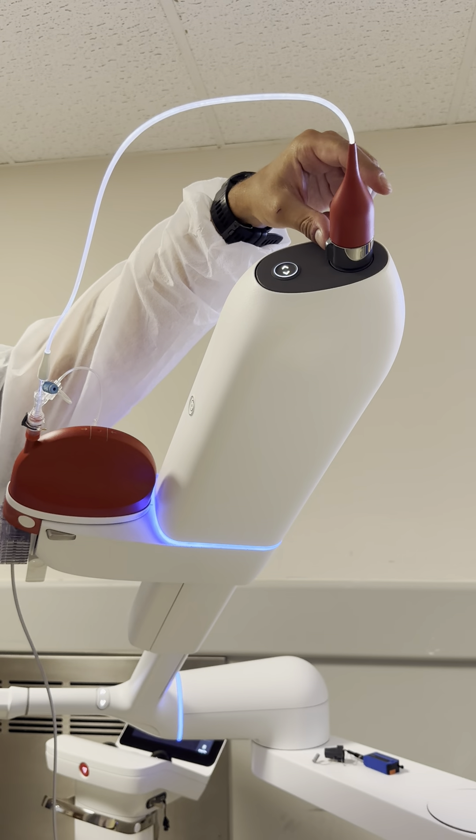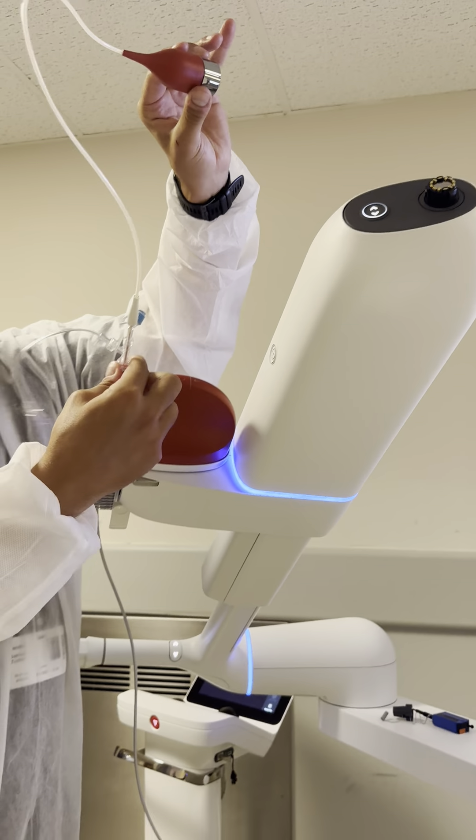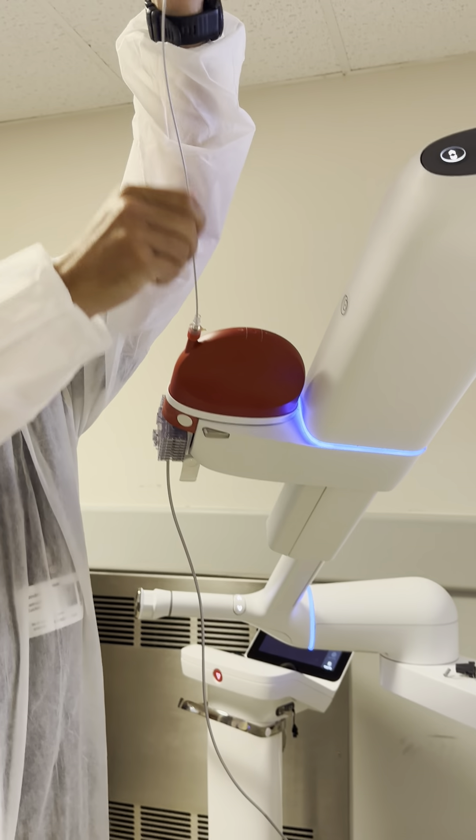For the vision probe, you'll see this fin — I'm going to push it and just pull it out. This gray button here: push, pull it out.